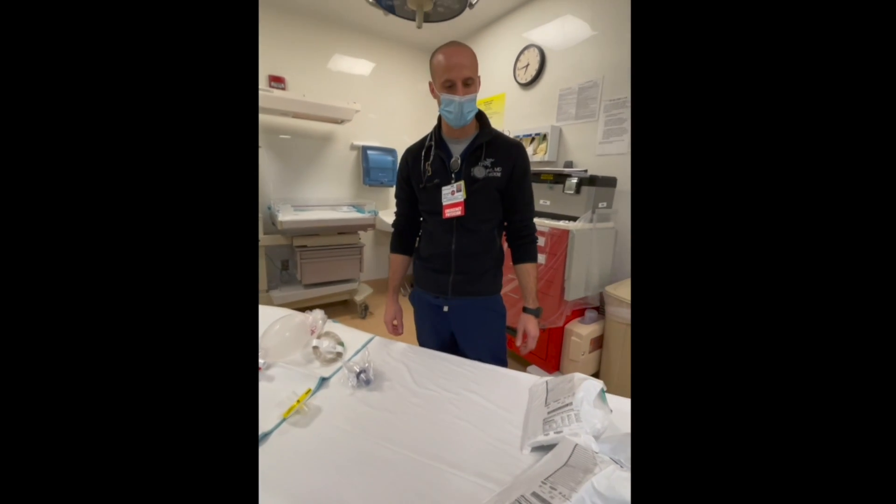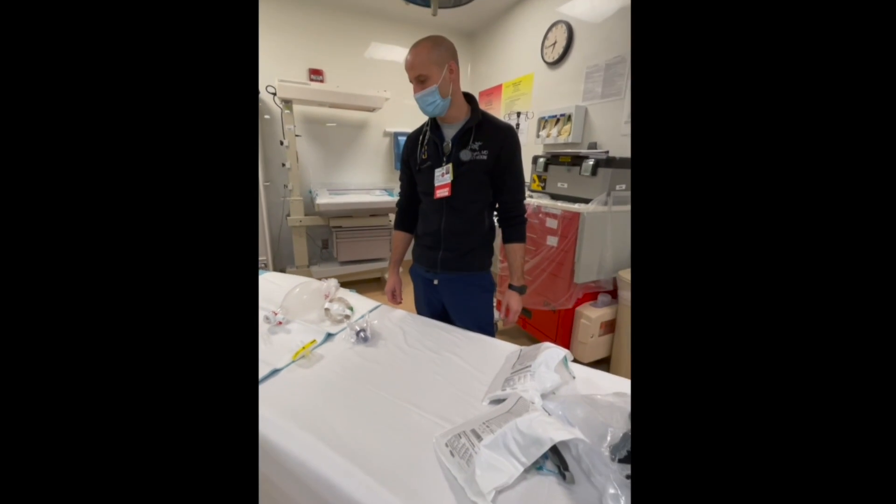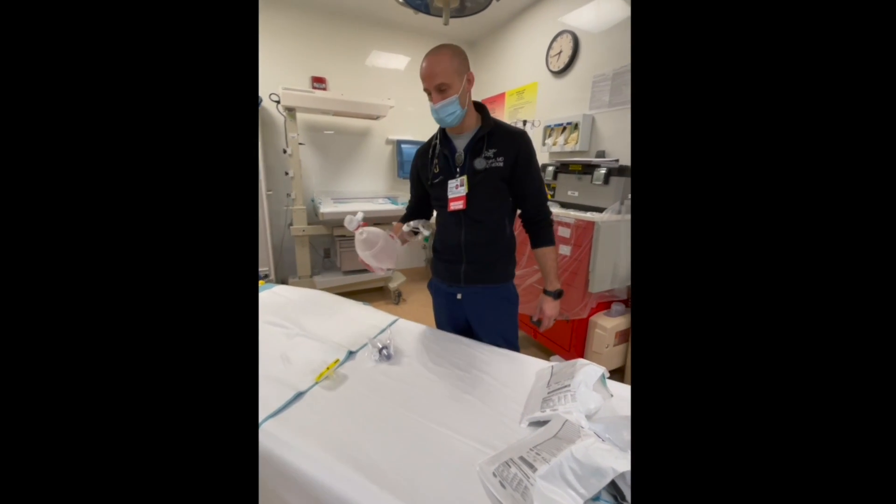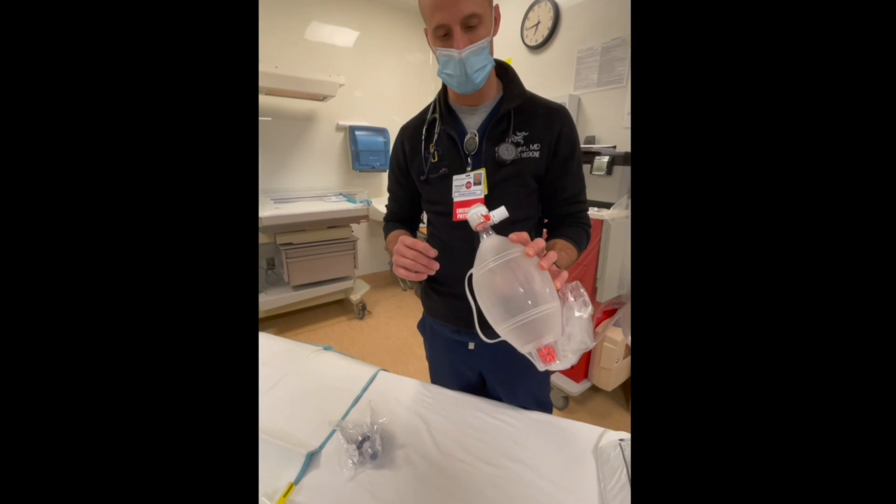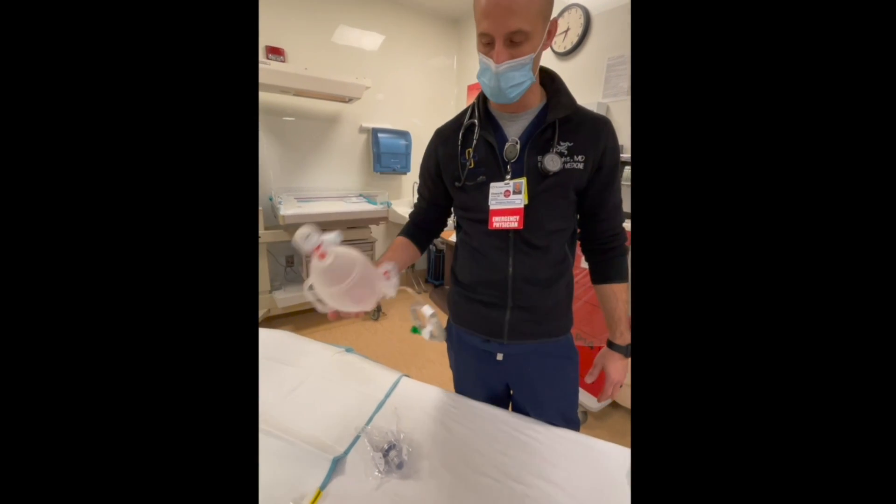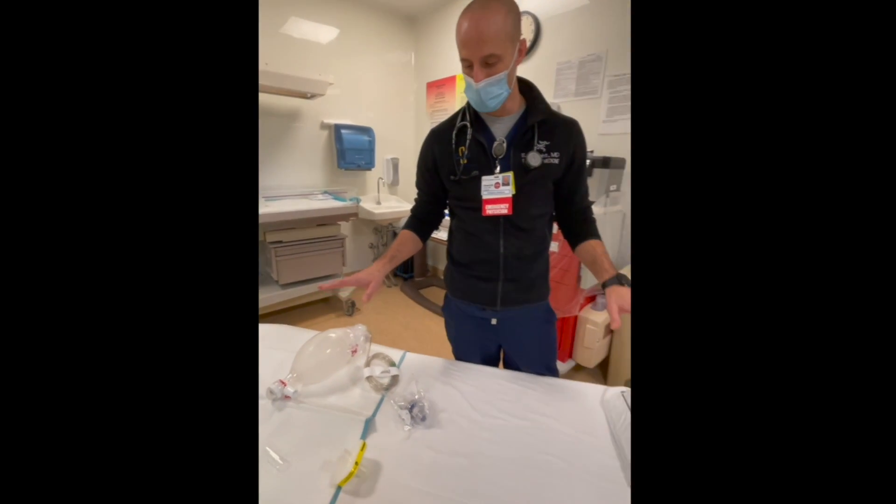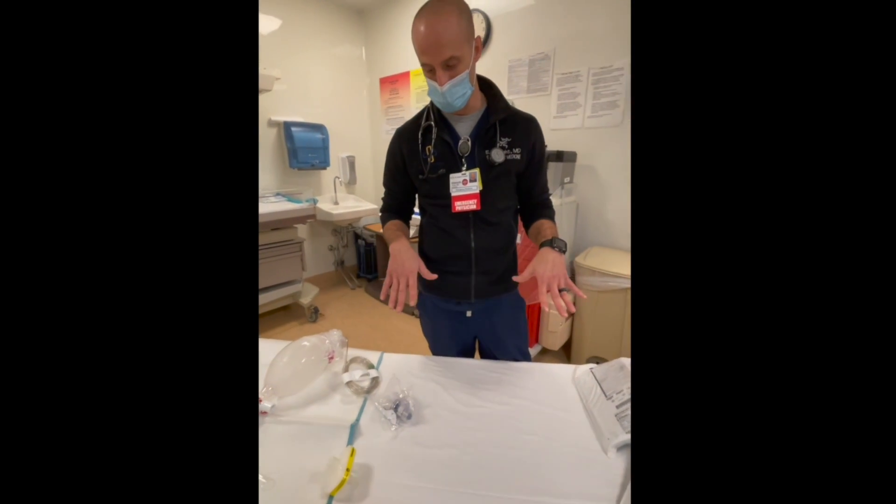We just wanted to do a quick walkthrough on how to put together a rudimentary CPAP. You're going to need a few different things and you can get all of this from the respiratory closet.